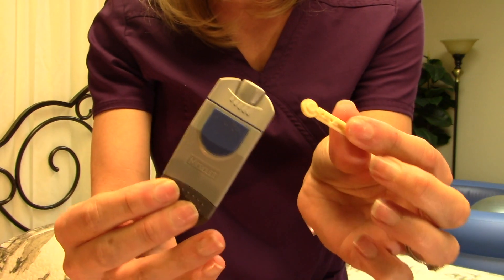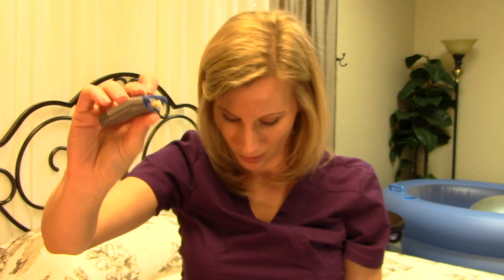So how are we going to get the blood? Well, that's where these things come in. Now this is the one-use lancet that I use in my midwife practice, but your doctor or your kit is probably going to give you something that looks more like this. The midwife who trained me used to call this the gun. Basically it has a pull-back and a trigger, and when you click it, it pokes your finger through this tiny little hole to give you a little stick. You would insert the needle into the gun — and there's the needle; all I did was pull off this tiny little needle protector. I'm going to put the cap back on, and when I pull back and press the trigger it's going to poke my finger. So you need a method to draw the blood, you need the glucose strips to grab the blood, and you need the glucometer to give you the result.